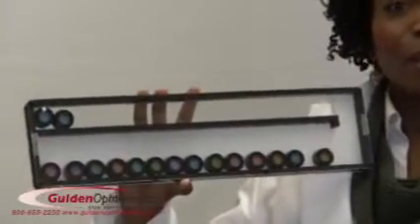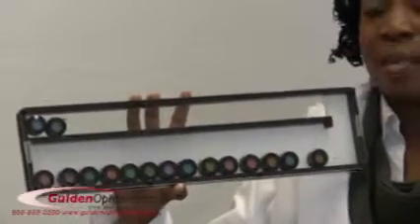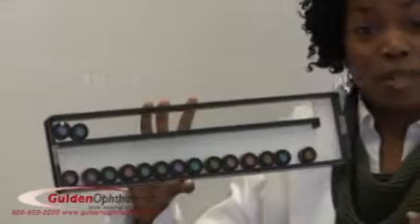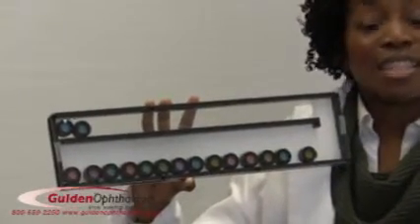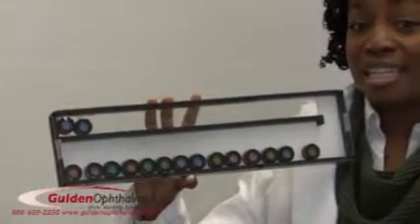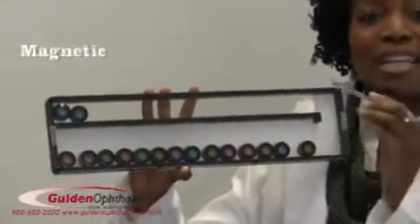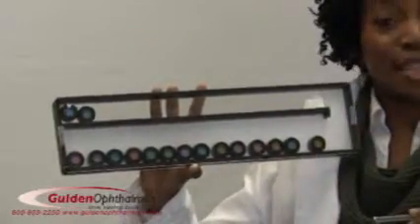The kits are comprised of numbered colored discs housed in a compact sealed plastic box that measures only 16 by 4 inches, thus saving valuable counter space in the exam room compared to other tests. The test is easy to administer and easy to perform by patients. Patients simply use the magnetic stylus to arrange the discs in the correct color order as they perceive it.